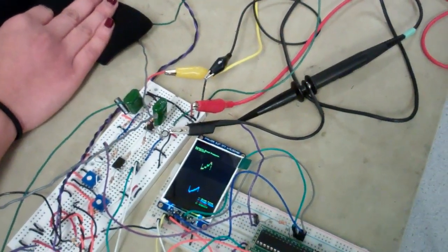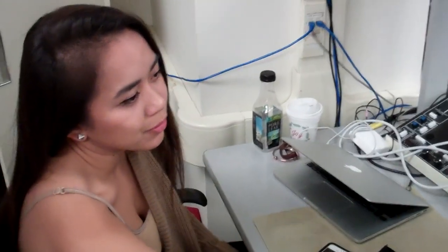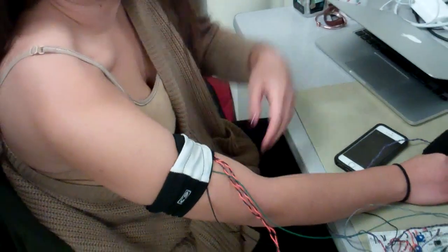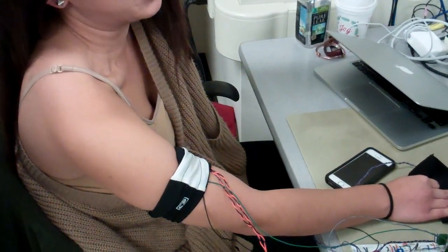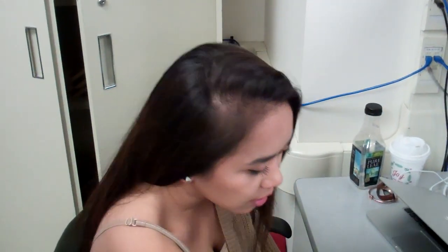The sensor can be pretty sensitive. If I'm not focused and keeping still, it causes issues. The arm sensor is really reliable and consistent, but the finger sensor — if I twitch too much — can give bad readings. In a hospital they would put a clip on your finger so that motion isn't an issue.